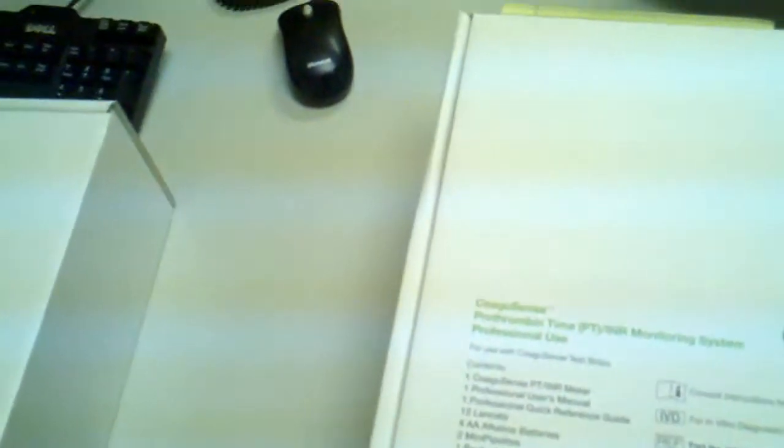And you can order all your supplies from us when you order your strips, I recommend. Then we only pay shipping once. So this is the CoaguSense PT-INR Meter Professional Kit that you can buy on GoSouthernMD's website for $899. And we will ship this to a physician's office. We have these in stock at all times. If you want us to overnight it, just please order next day's shipping.